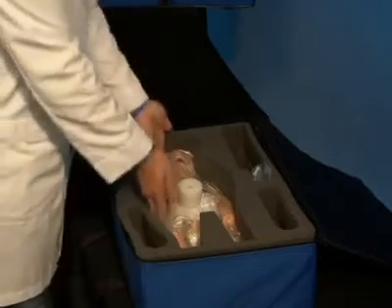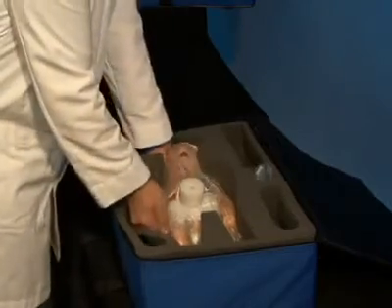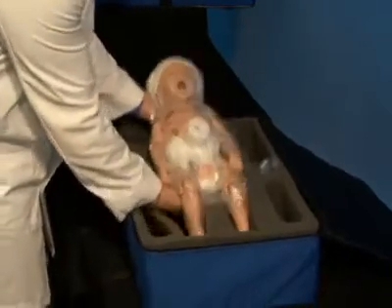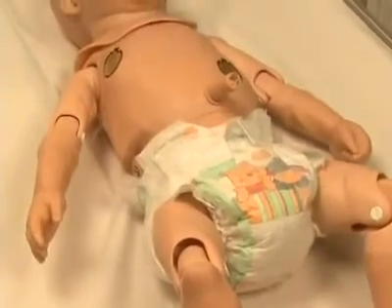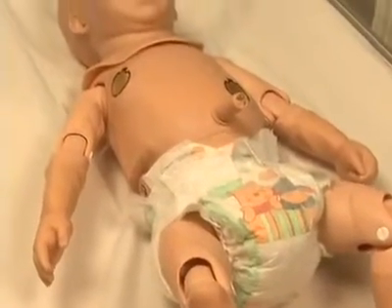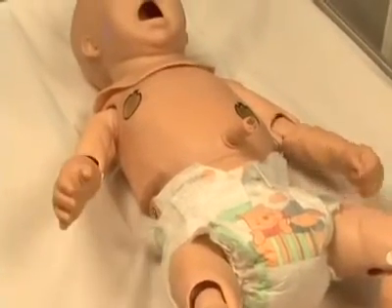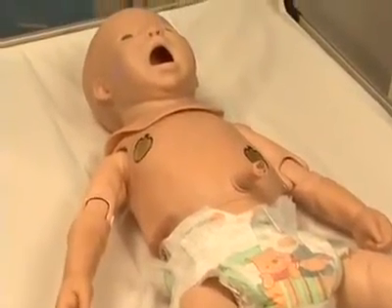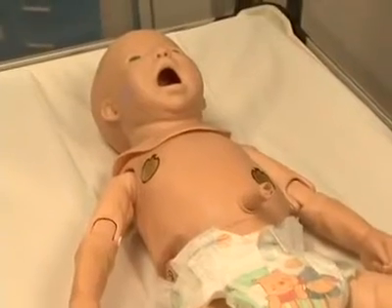Remove the fully assembled and ready to use newborn mannequin from the case. It is however strongly recommended that the battery is fully charged prior to use.